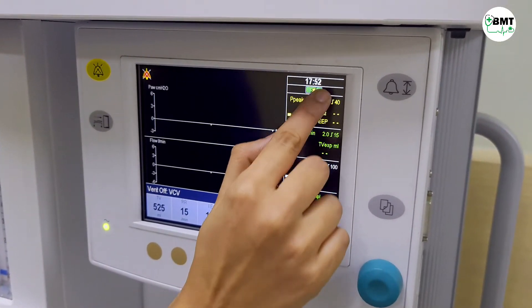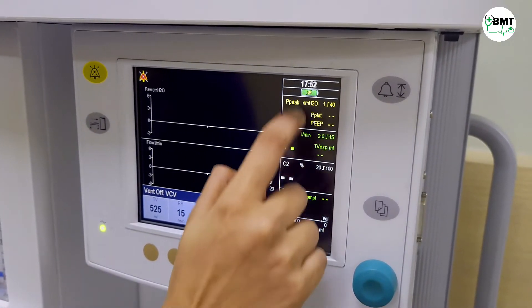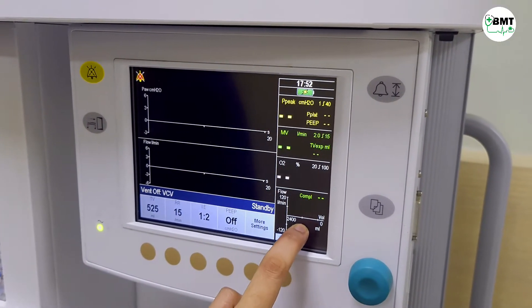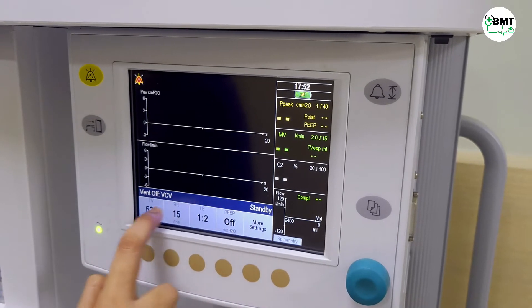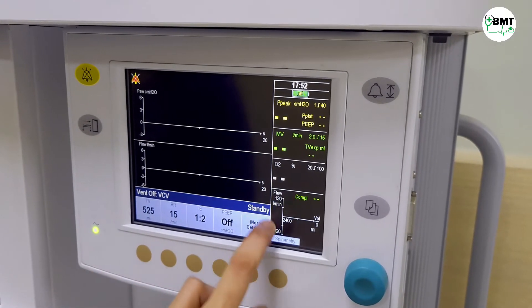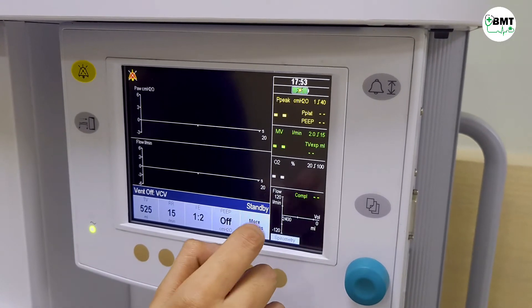This is the battery indicator. These are the readings from the patient. This is what you have set. This is the spirometry graph.